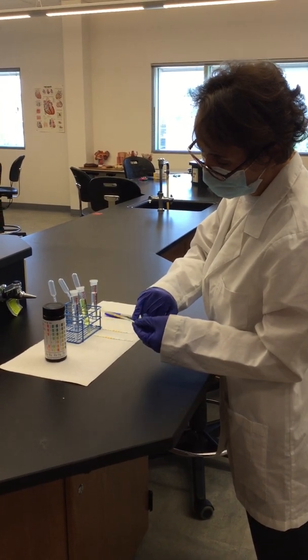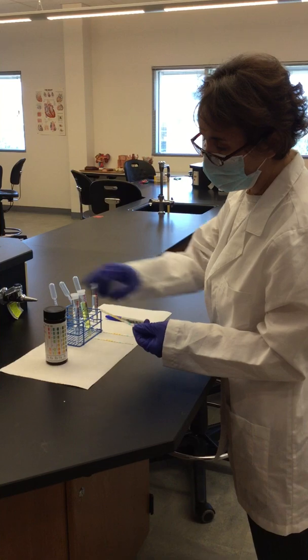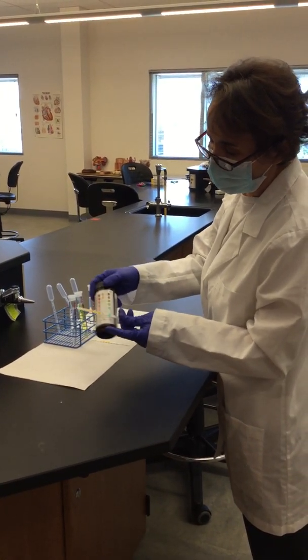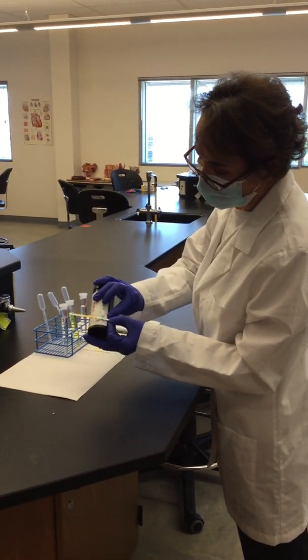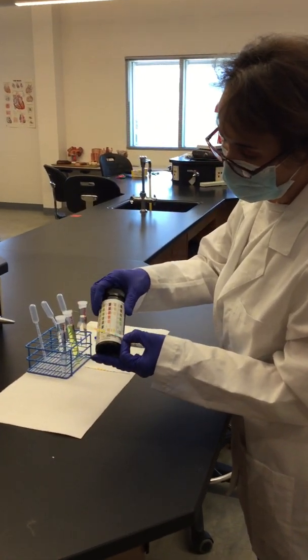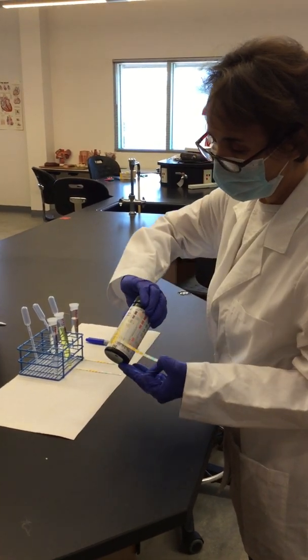This upper square is just the reference line of where we are going to start reading over this flask. So when you're reading, you align this top square to this one here, and then you move in this direction, aligning the rest of the squares until you reach the last one.